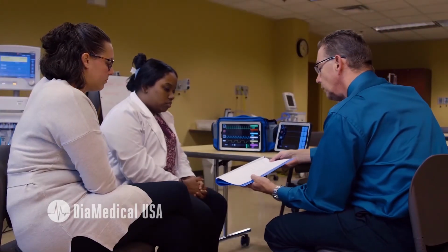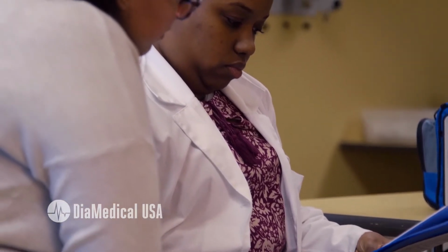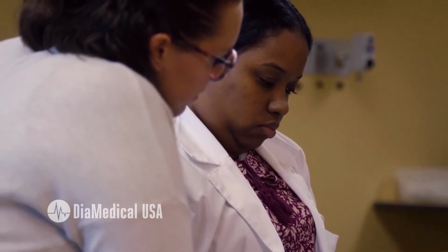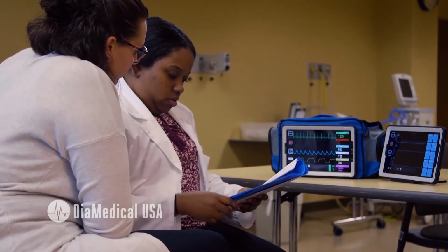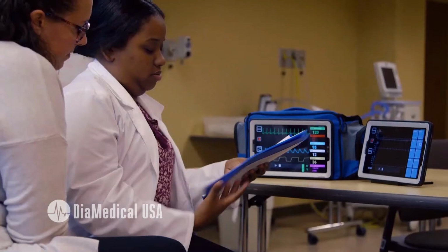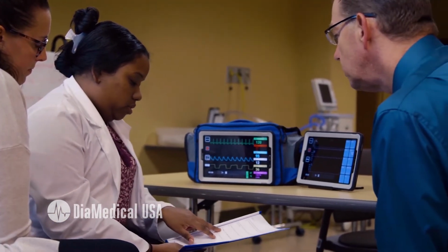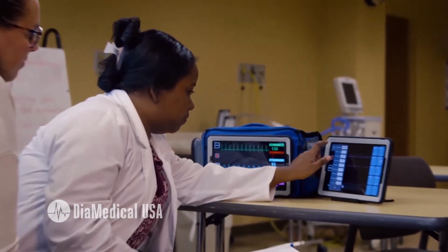I'm just going to give you guys this. Understanding that this patient's intubated and he's head trauma, which of the following choices would be the best choice? And then once you guys have made your choice, I'm actually going to have you input the ventilator settings on the ventilator screen. What choice? Choice C. Volume control. C. Okay, so let's go ahead and put those in on the screen.